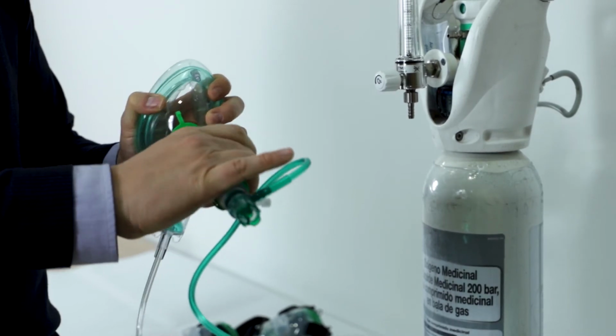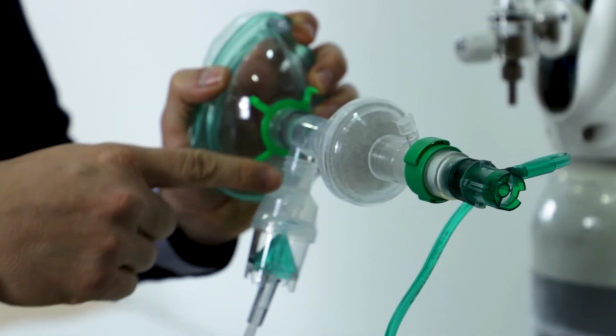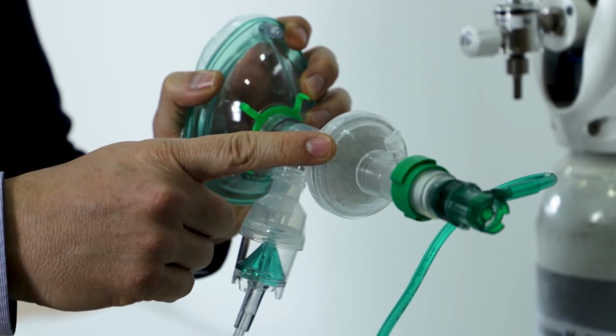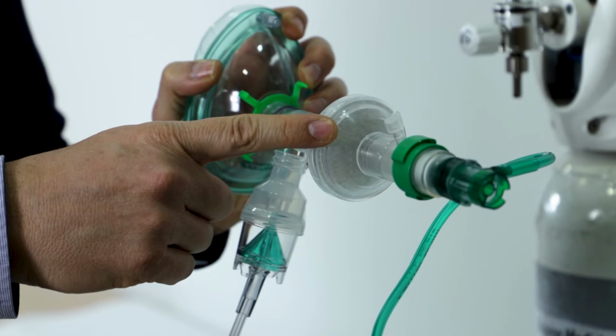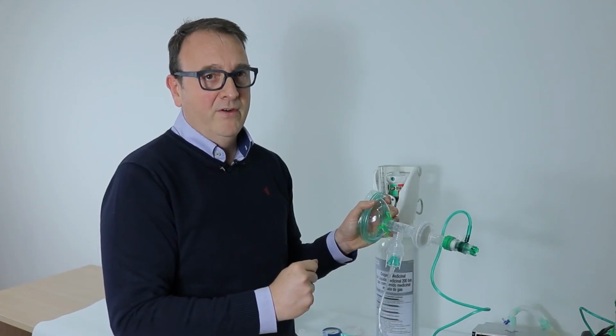This is really important because sometimes the particles can saturate the filter, and sometimes when you finish the therapy, you need to change the filter. It's really important to notice that some of the particles can escape through the leakage around the face mask. So this is not a 100% safe system, right? For that reason, all the practitioners, all the doctors, all the people involved in the care of this patient should wear a proper mask and proper dress for the therapy.